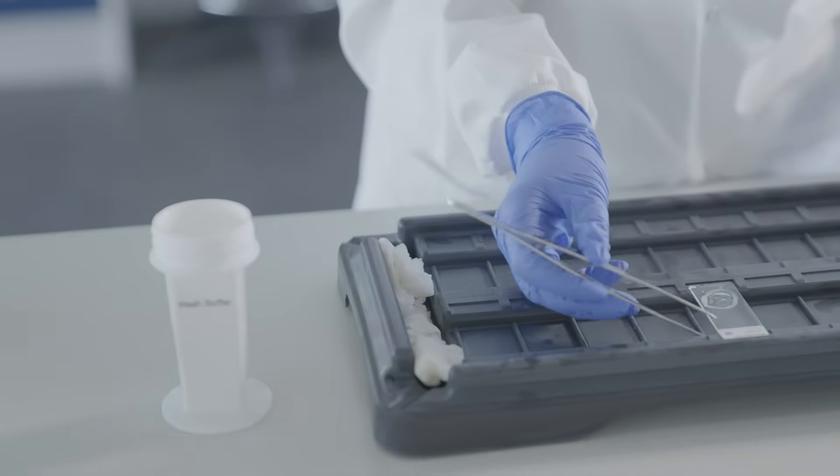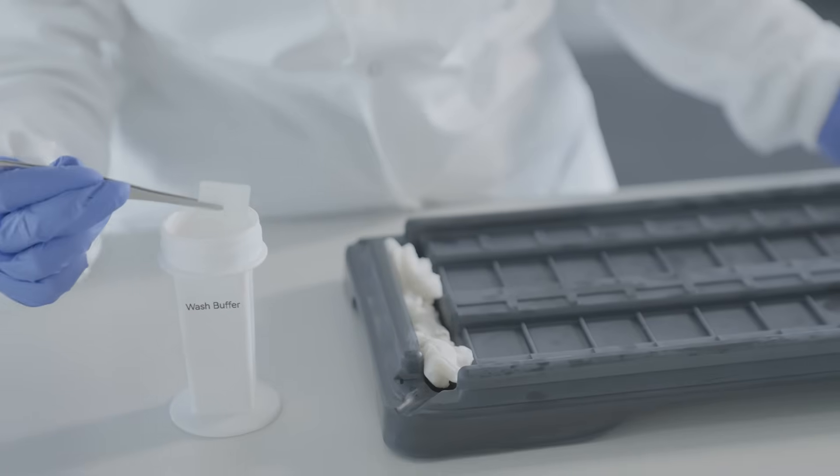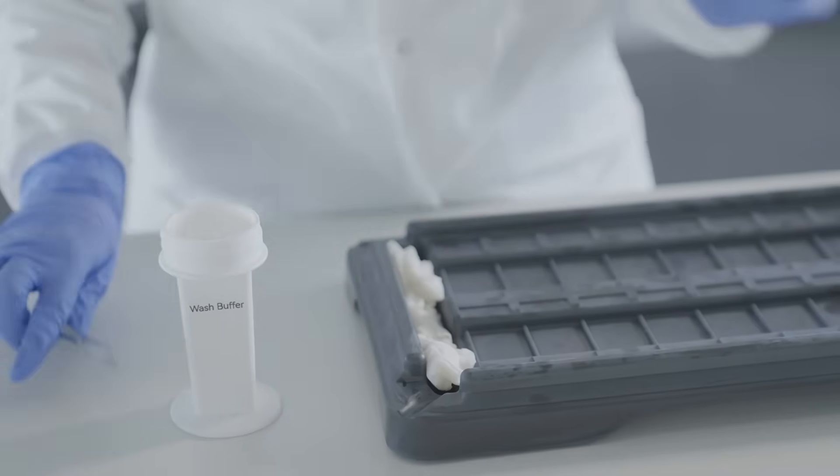Following primary antibody incubation, wash slides three times with wash buffer for three minutes each.